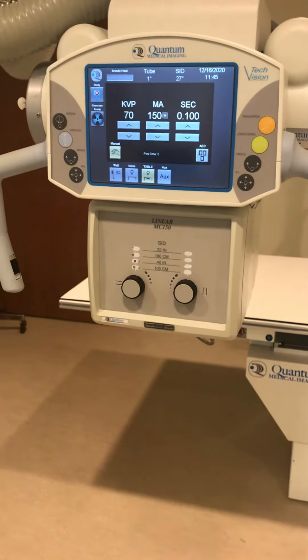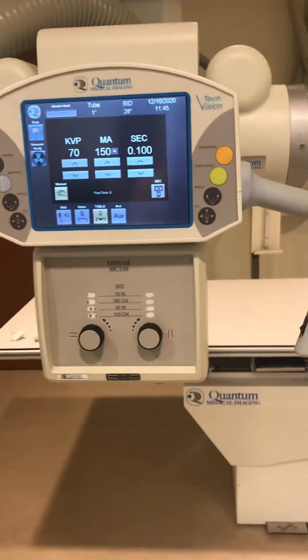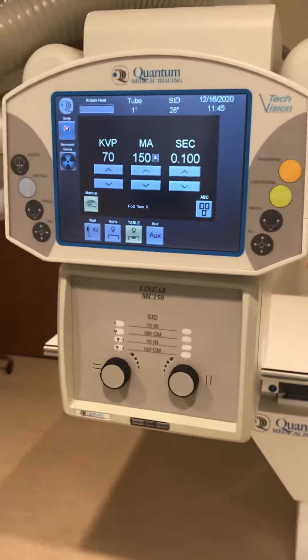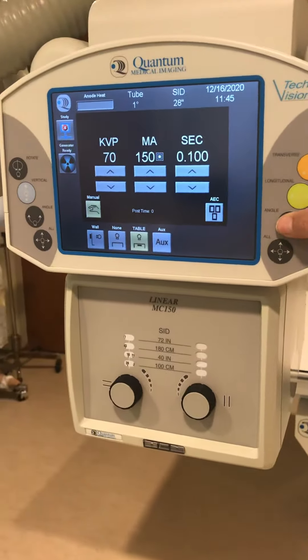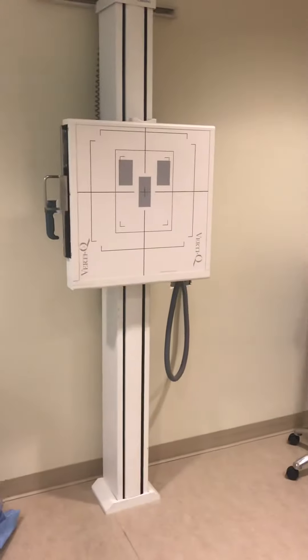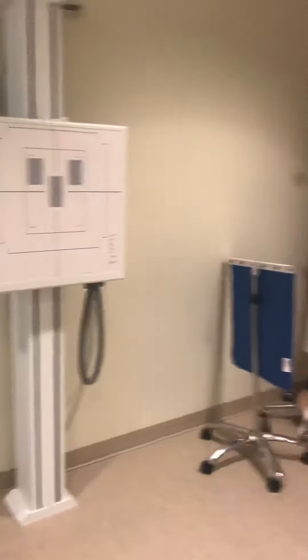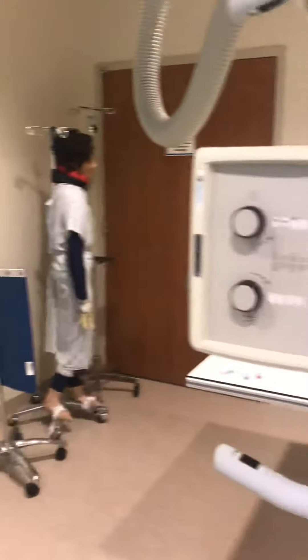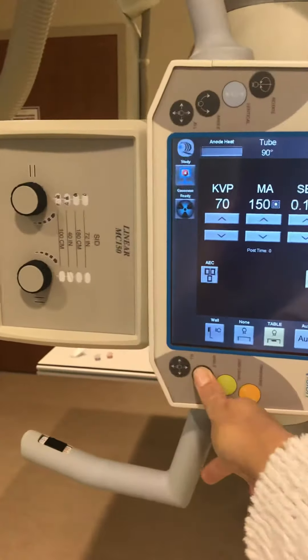I have pulled the x-ray tube out away from the table. I'm now going to hit the angle button to turn the tube up, and there's the wall bucky so the patient will be standing over there. I've turned it so that the x-ray tube is facing the wall bucky.